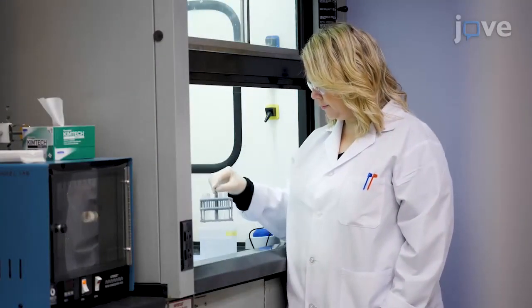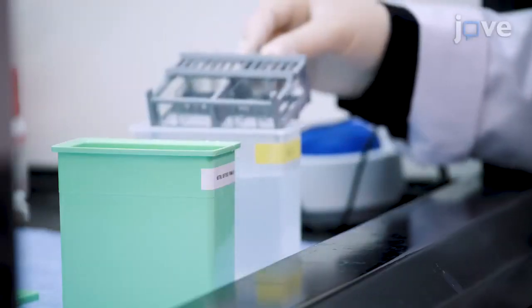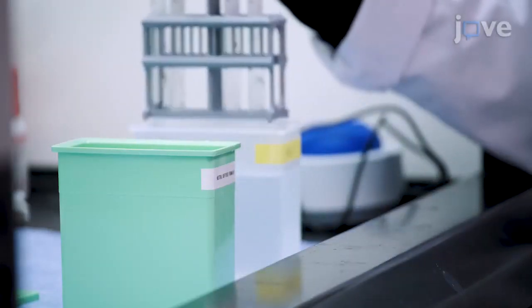Wash the rack of slides with deionized water and then fix the slides by submerging them in neutral buffered formalin for 30 minutes.